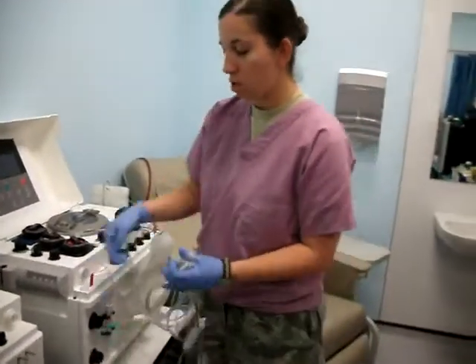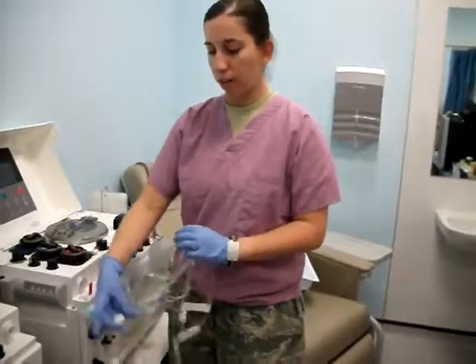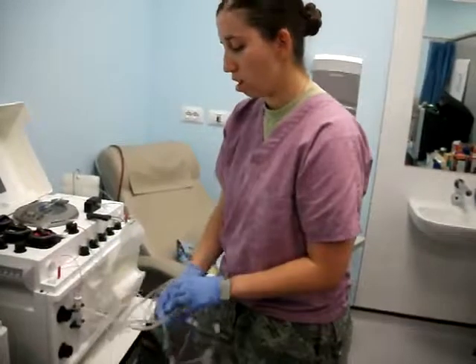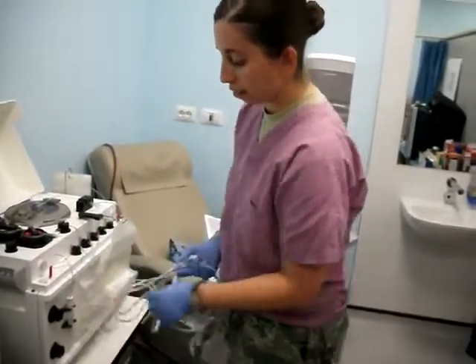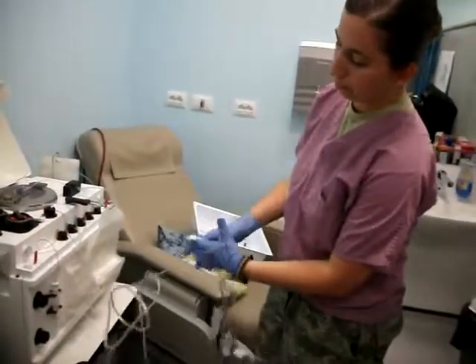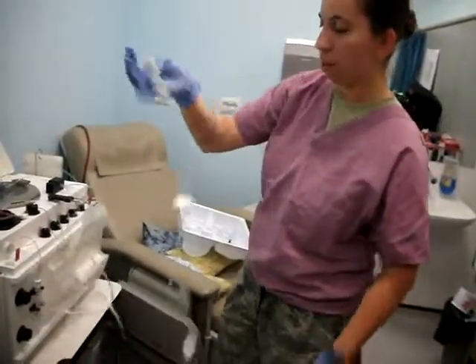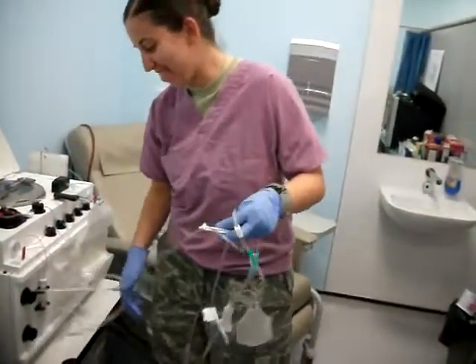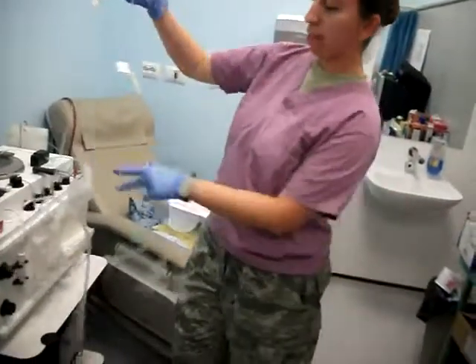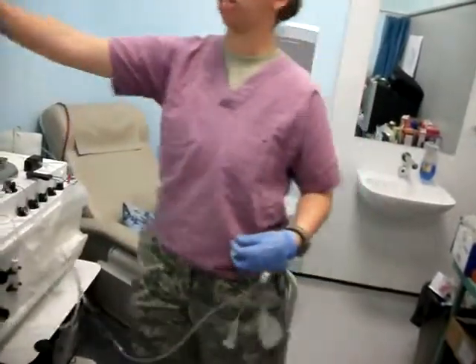You can take this apart and loop it around three times, holding it by the needle — do this three times and it untangles. The other method is you just take the needle loop and this anti-coagulant loop and kind of pull them apart. Then you can just hang it right there.